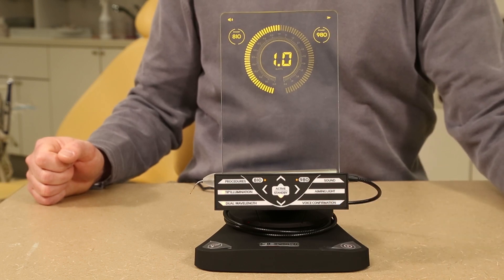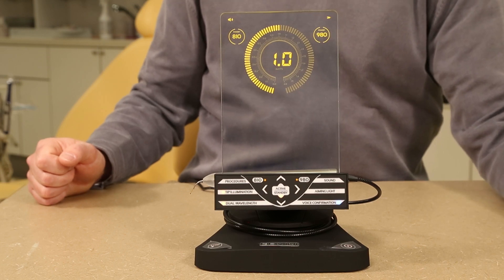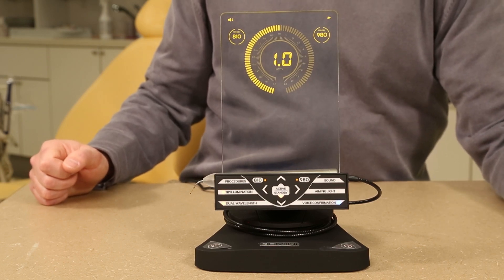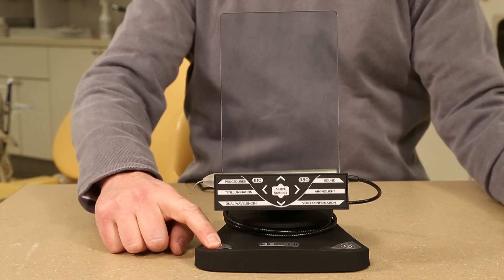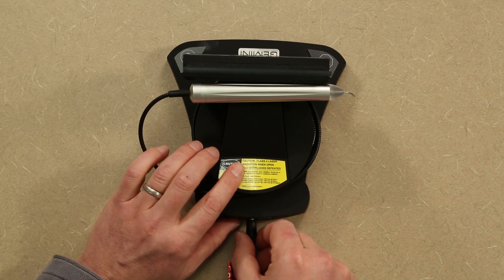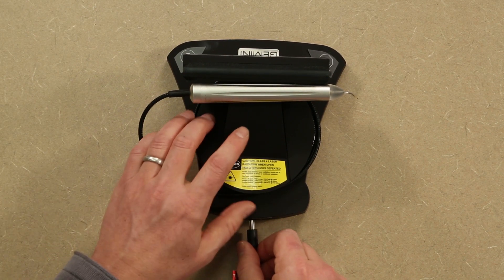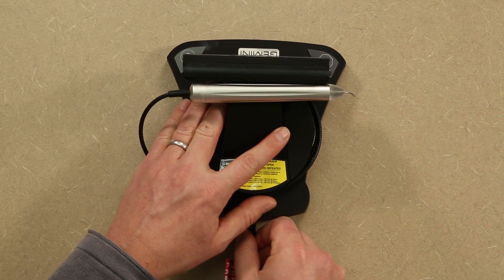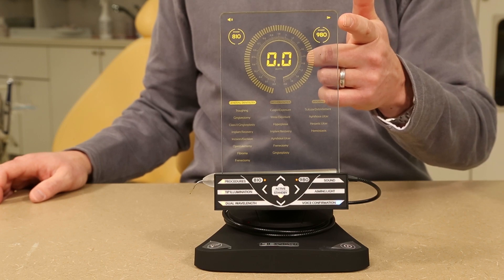The sound button also allows the user to arrow up or down based on the preferred sound output. The voice confirmation button toggles between enabled and disabled to your preference. At any time, the laser can be turned off by the stop button in the lower left hand corner. The unit can be unplugged and on a full charge will last approximately 90 minutes. The battery indicator in the upper right hand corner will display the current status.